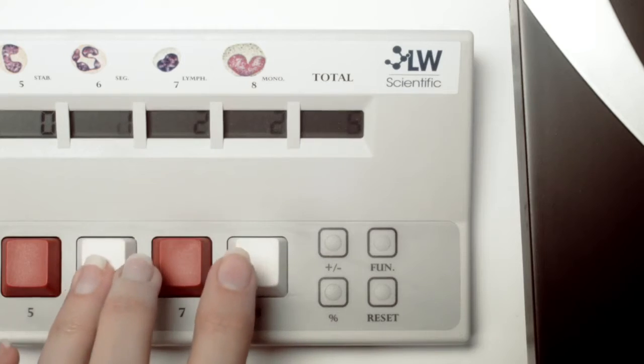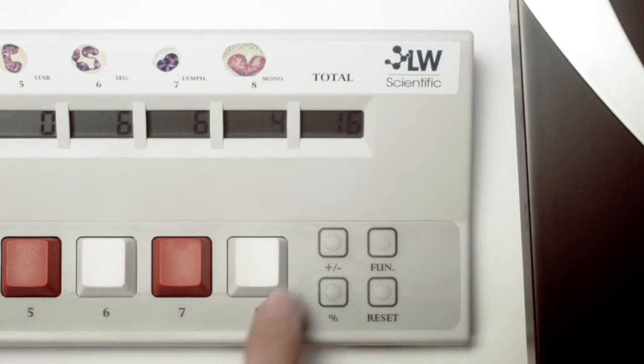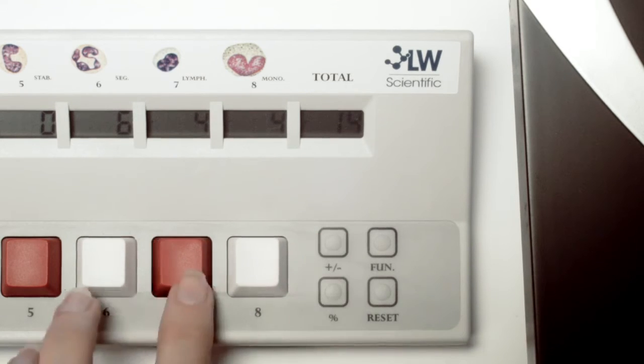Misclicks do happen though, and with its built-in plus or minus function, keeping your counts accurate without the need for tedious repetition is quite simple.